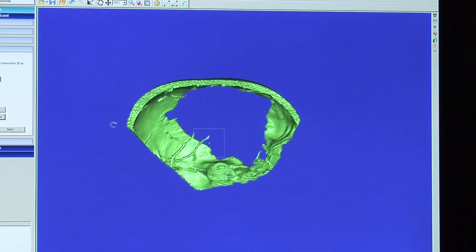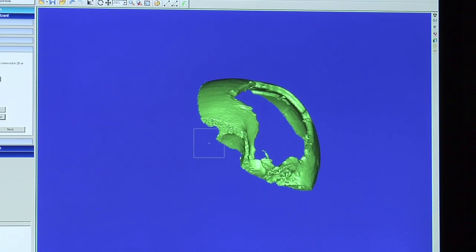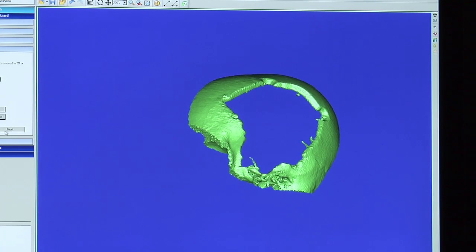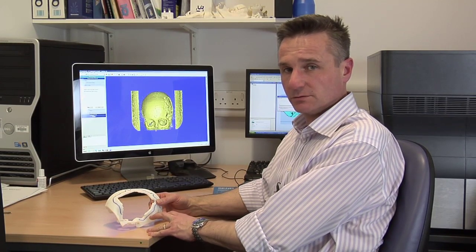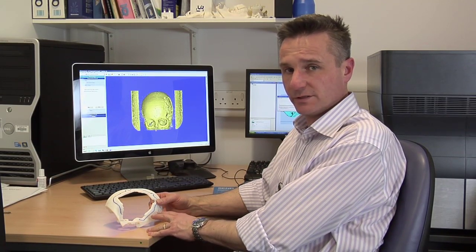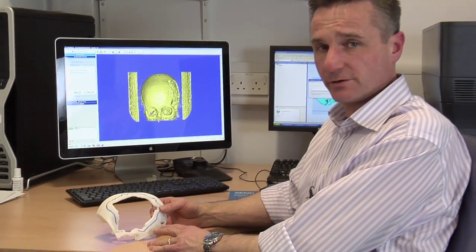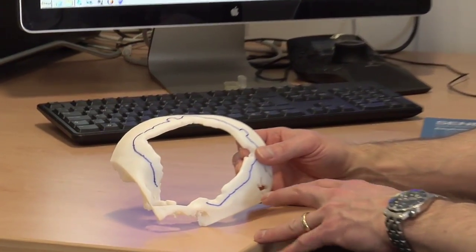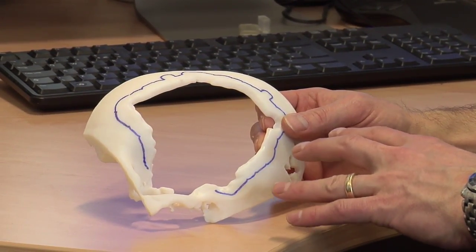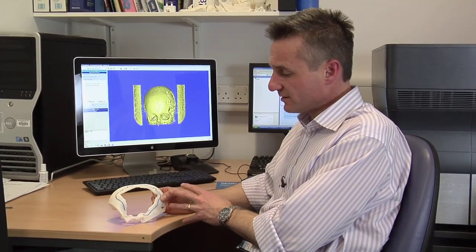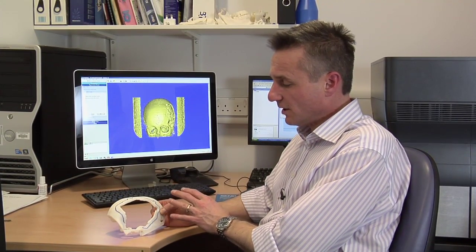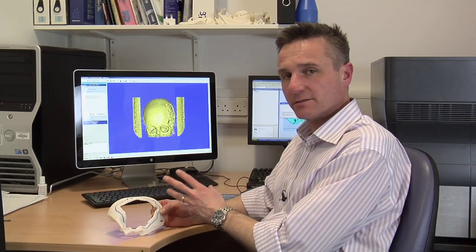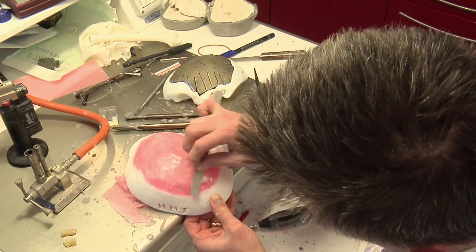That now is the size of the model that I would want to build on the rapid prototyping machine. As you can see here, we've actually got the 3D model after it's been printed. We've de-vested it, taken all the support material off, and it gives us a very accurate bony defect of the skull. Our next step would be to take this into the laboratory and start to emulate the piece of bone that has been taken away.